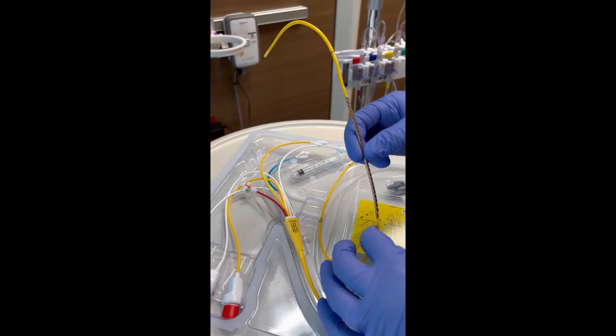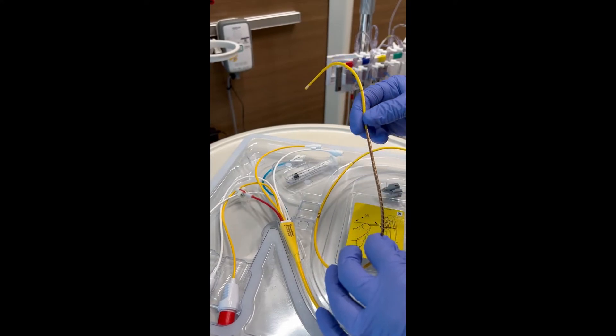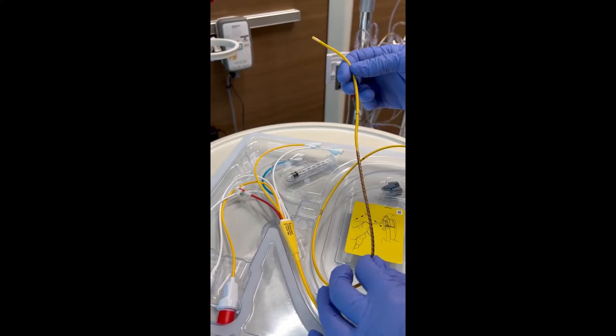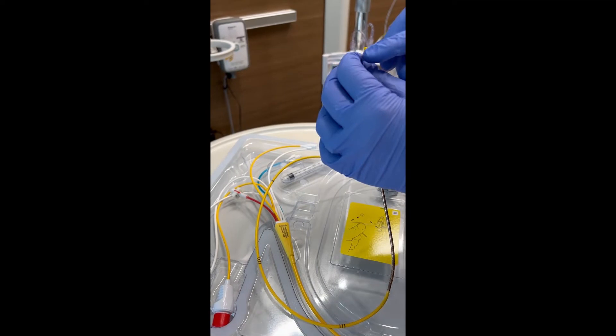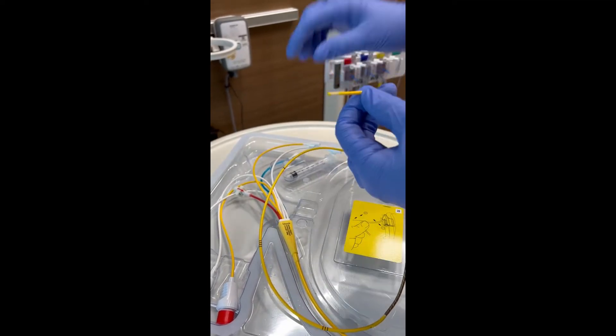This is the thermodilution coil. It's how it uses temperature to measure your cardiac output. It's got a sensor here on the end, and then your balloon is right here.